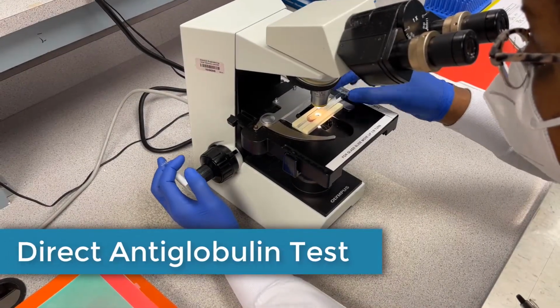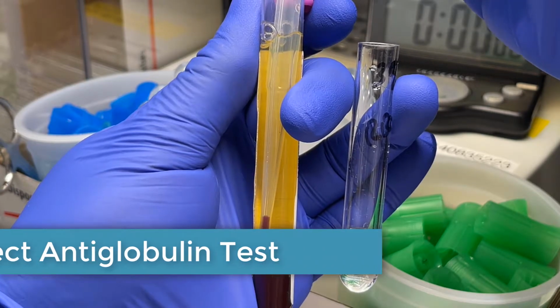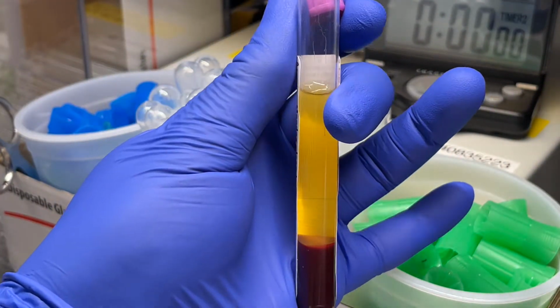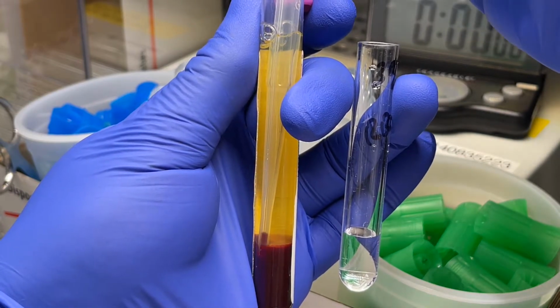Welcome! This video is a basic demonstration of a direct antiglobulin test, or DAT for short. The DAT utilizes the red cell portion of a whole blood patient sample collected in an EDTA anticoagulant tube.